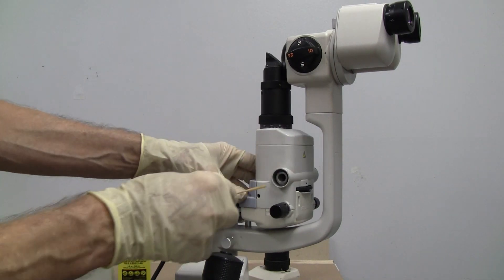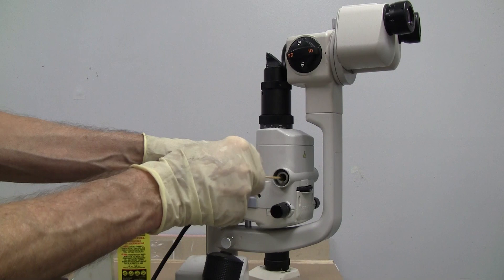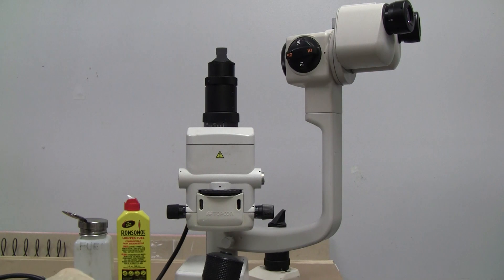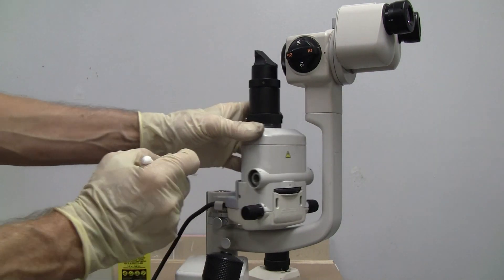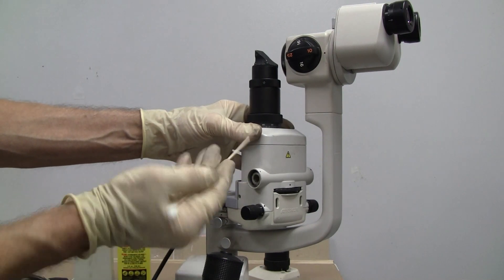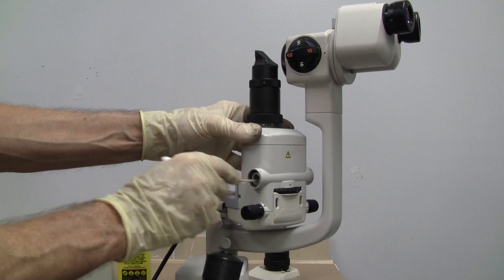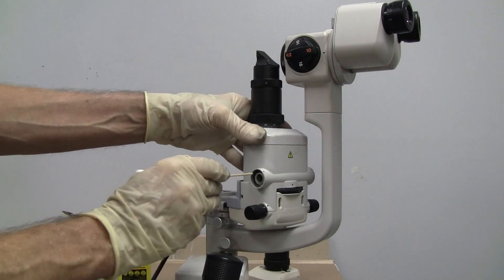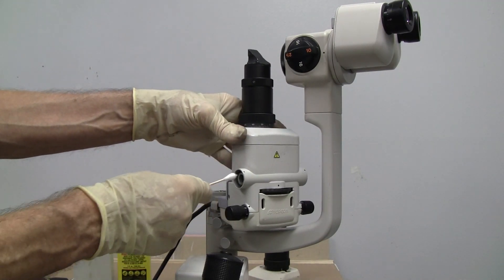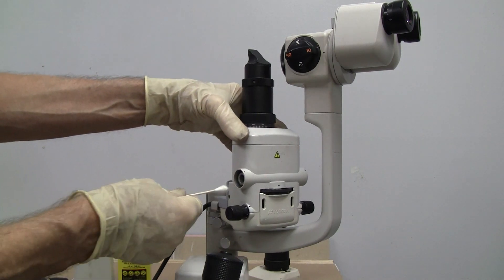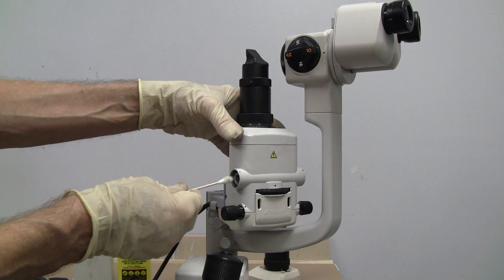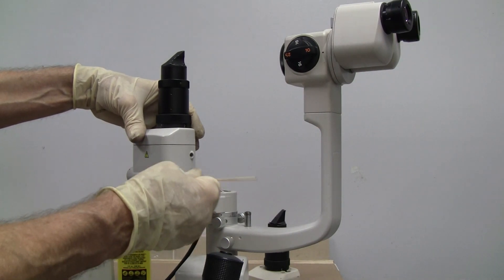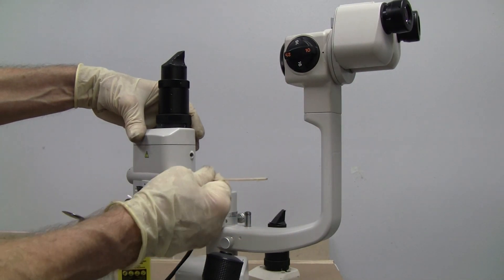And then I'm going to re-lube in here, on both sides. And then I'm going to wipe it out. First I'm going to try to coat it with the flat part of the stick, just to ensure that there's a little bit of grease on the housing, the wall of that shaft. And then I'm going to wipe it out with a Q-tip. But as I'm doing that, I'm leaving a little bit residual on the sides.